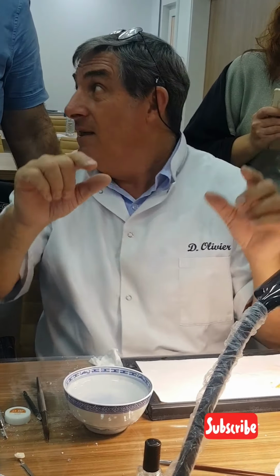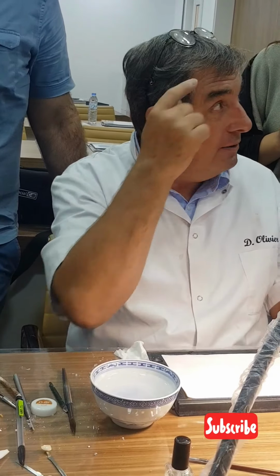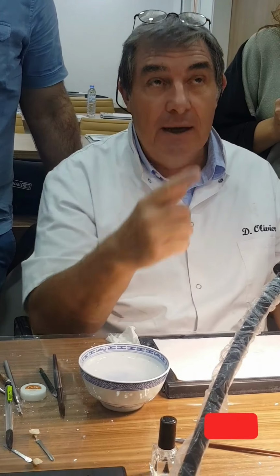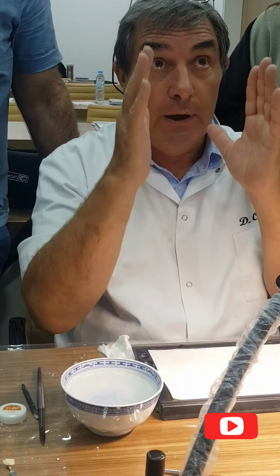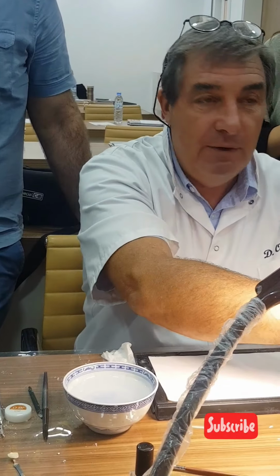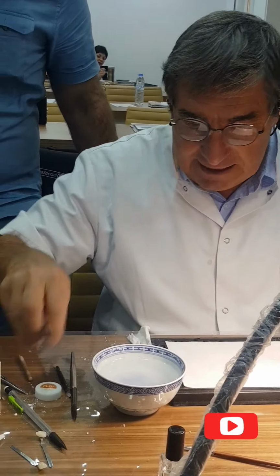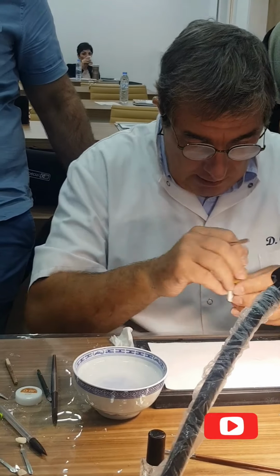You understand? I organize everything in that way. So at the end, you have to keep that in mind. At the end of your translucent, you have to come back to the final shape. I will show you with the central several times, but it's a very, very important idea of my technique.